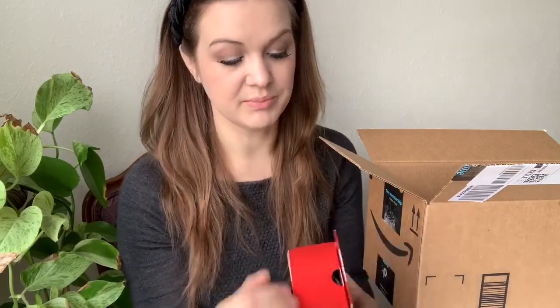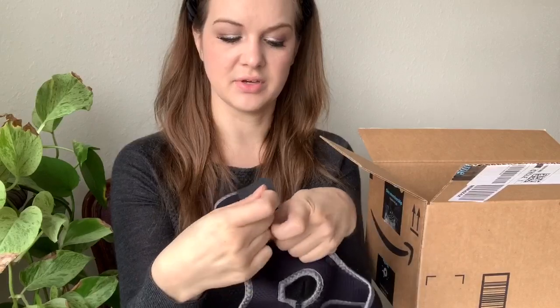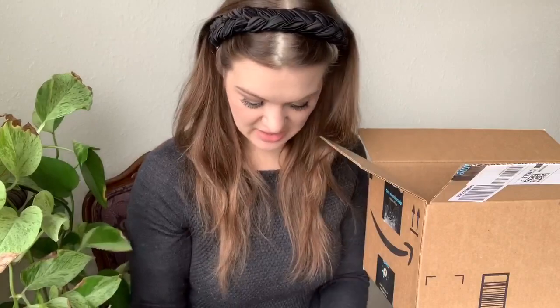An ACE ankle compression band. I have so many of these, but I guess I've got to make sure I'm supplied and have the correct one they want. It looks pretty simple — it's going to go around my heel, velcro around the front of my ankle, like that.